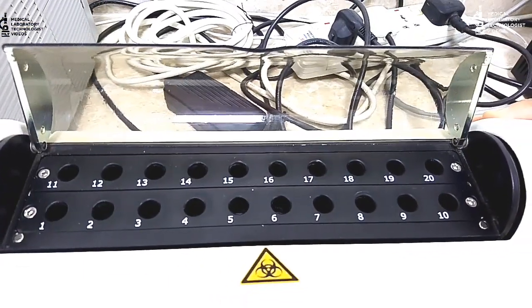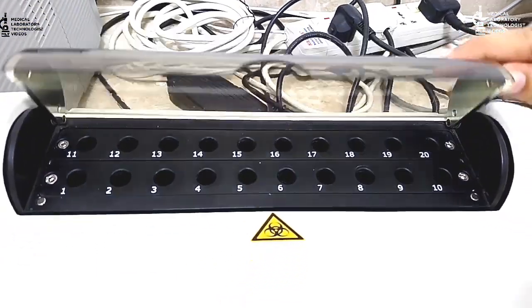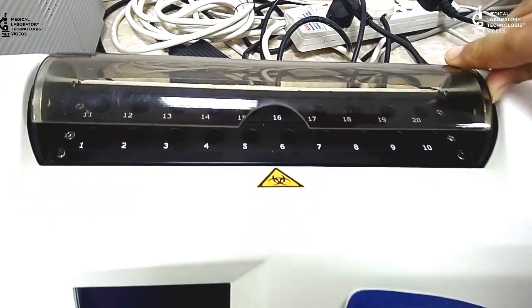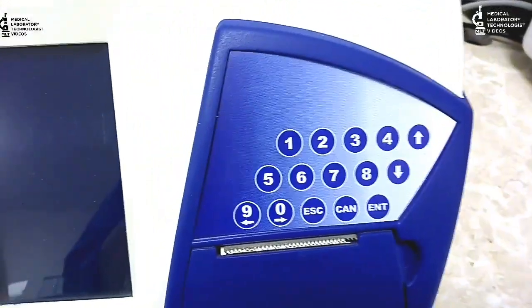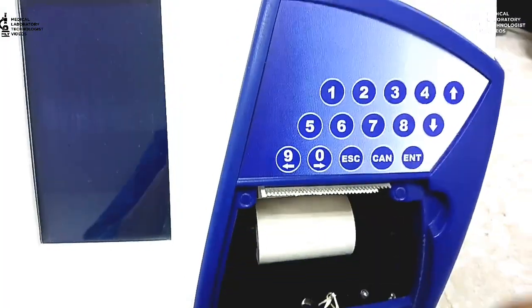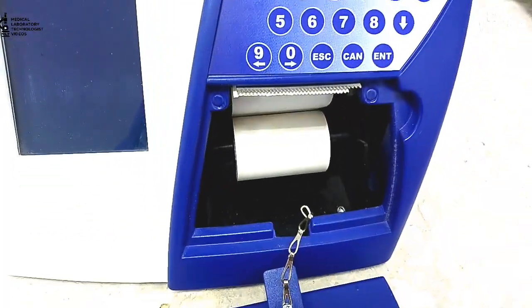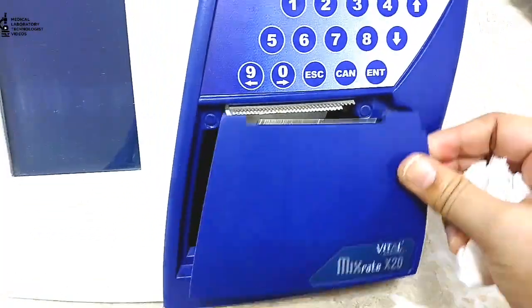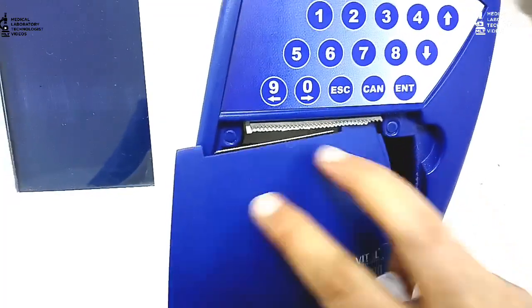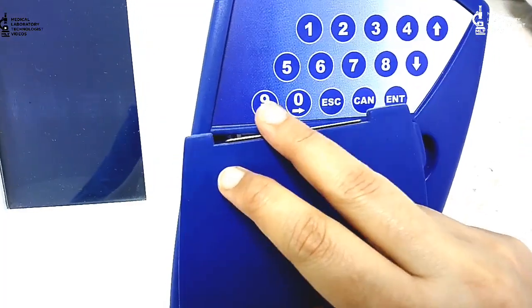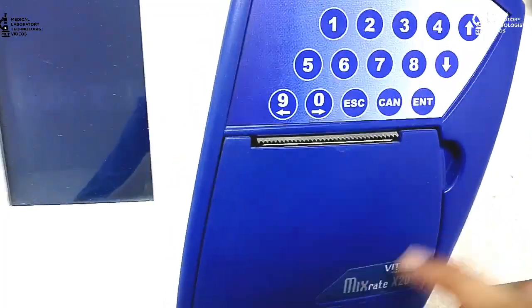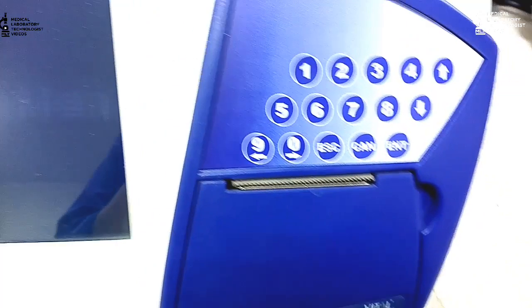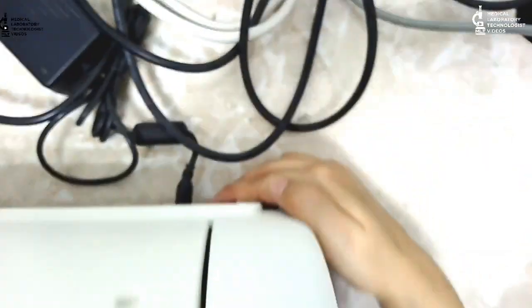First, I will tell you about this machine. This is the screen, and this is the keypad for this machine, and this is the printing roll that we have to insert manually. If you have a phone in your hand for making video, this problem will come with the door, otherwise it's very easy to close. On the back side, there is the button for switch on.